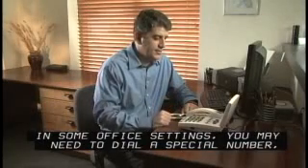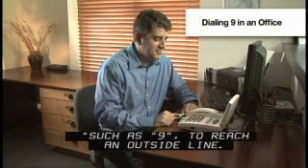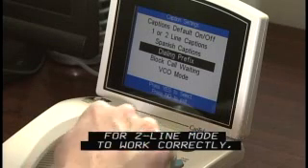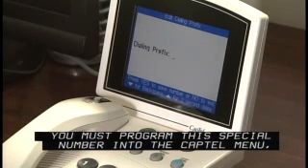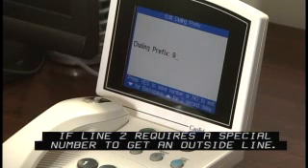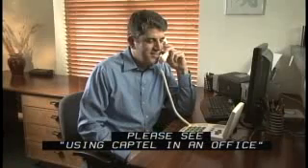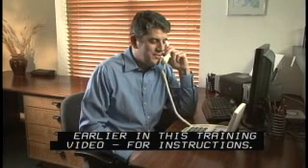In some office settings, you may need to dial a special number, such as 9, to reach an outside line. For two line mode to work correctly, you must program this special number into the CapTel menu if Line 2 requires a special number to get an outside line. Please see Using CapTel in an office earlier in this training video for instructions.